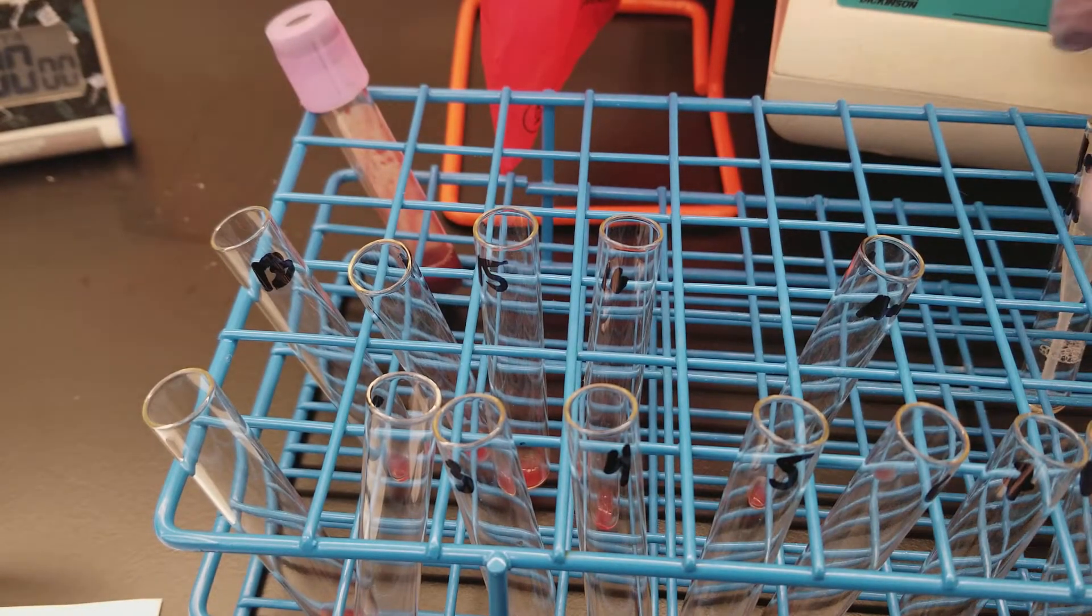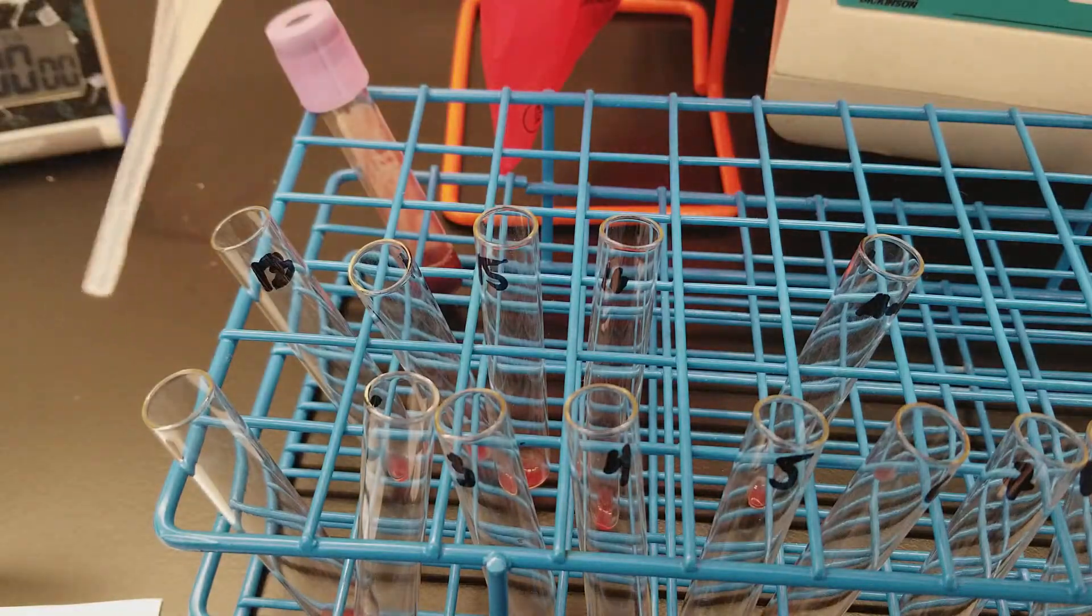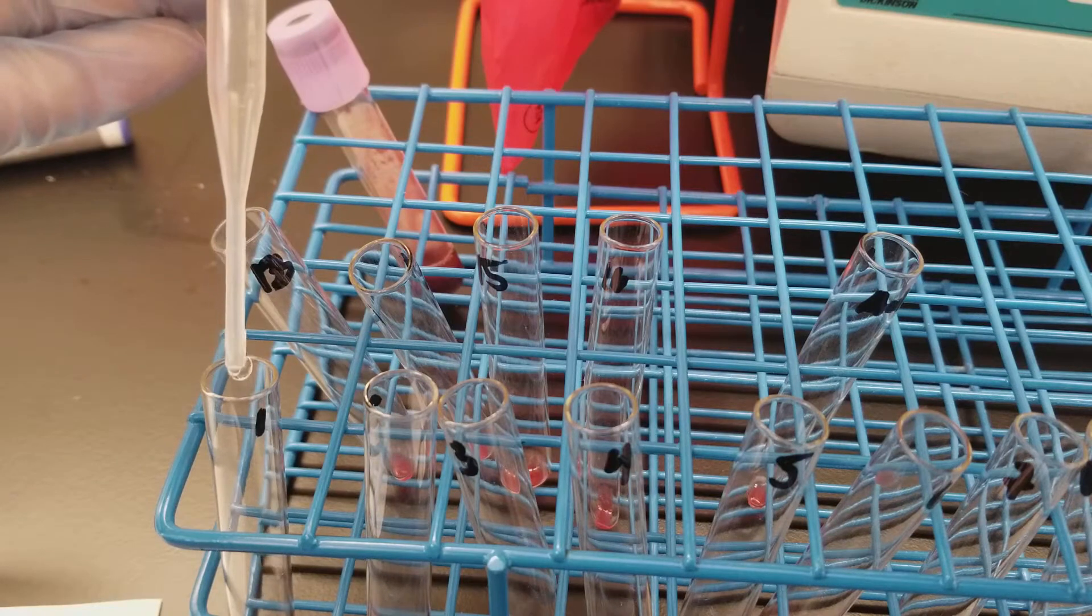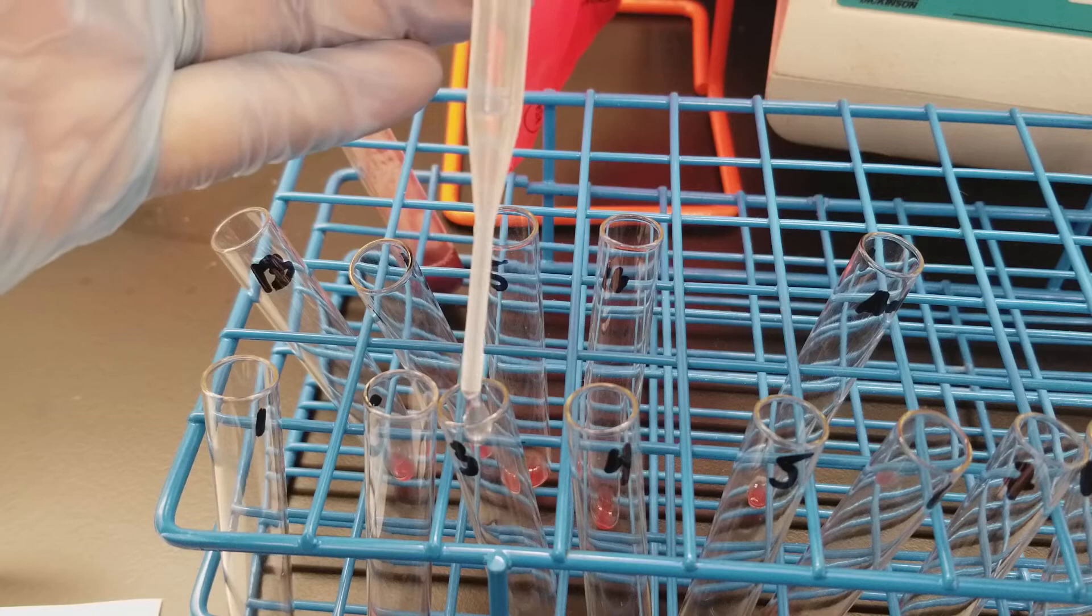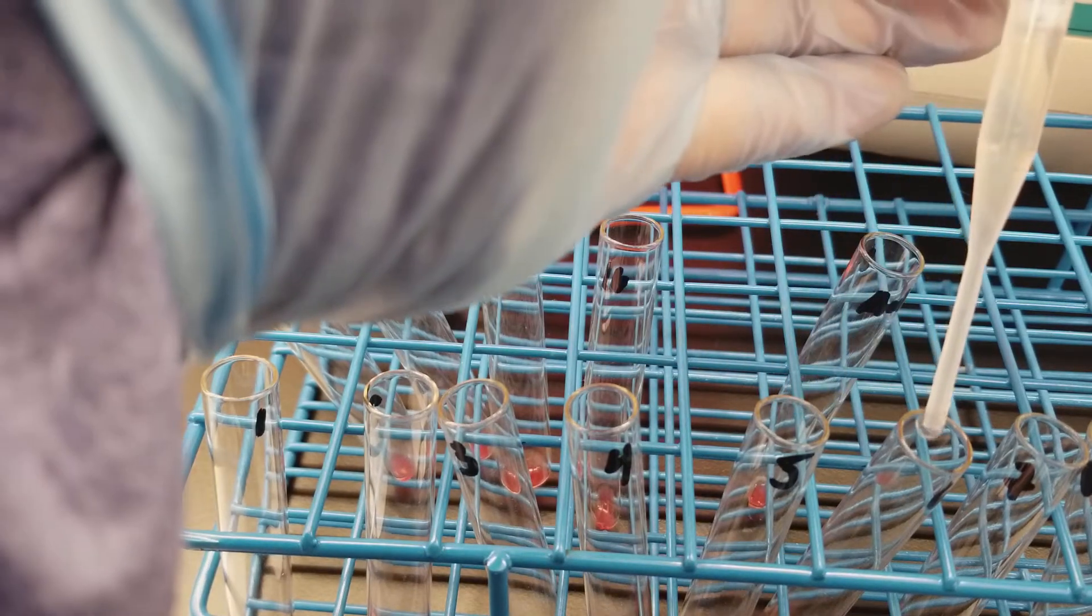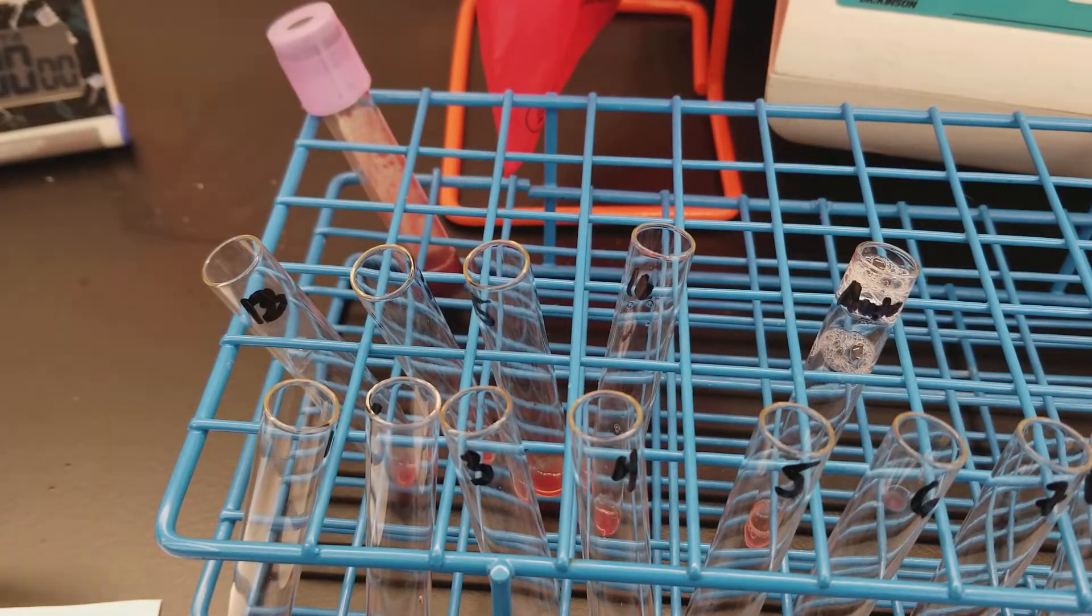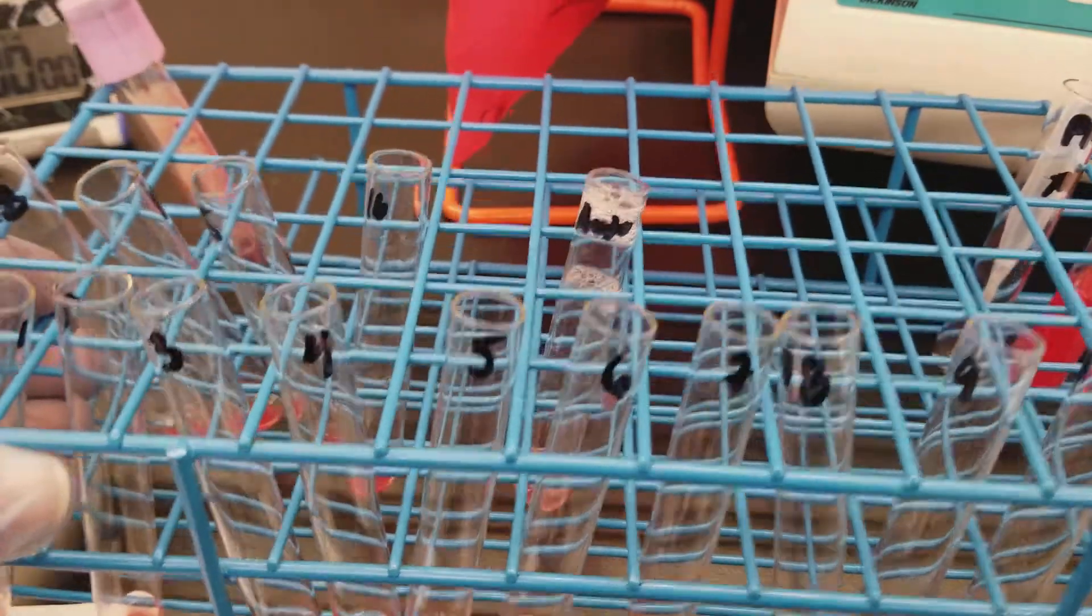I put reagent cells into all of the tubes, and so now is time to add the two drops of the patient plasma. I'm going to add it off video. I added patient plasma to all 17 tubes. This is wild.